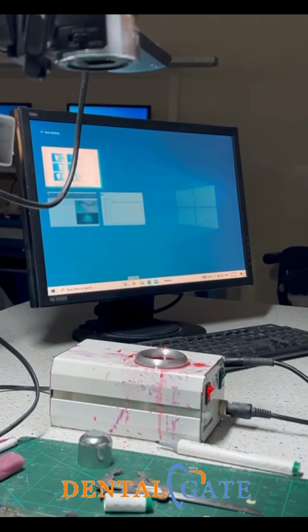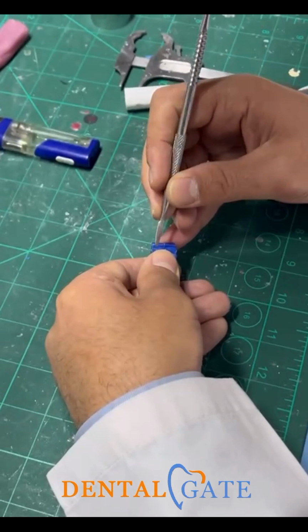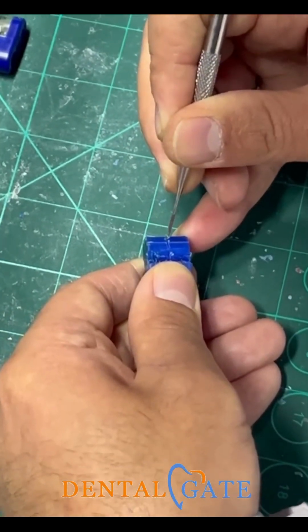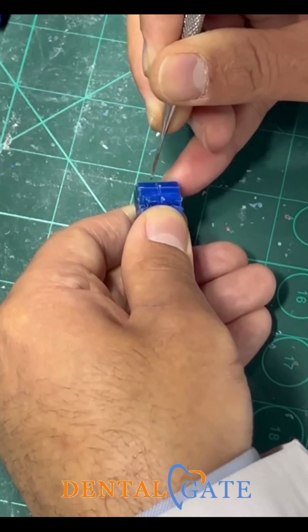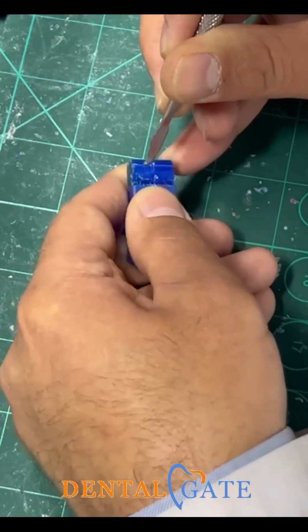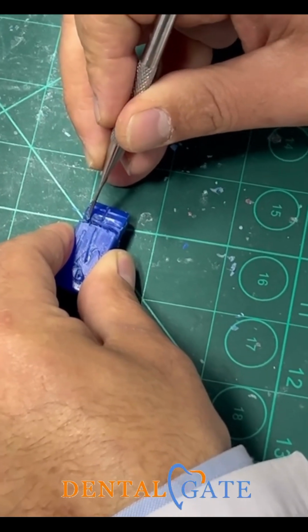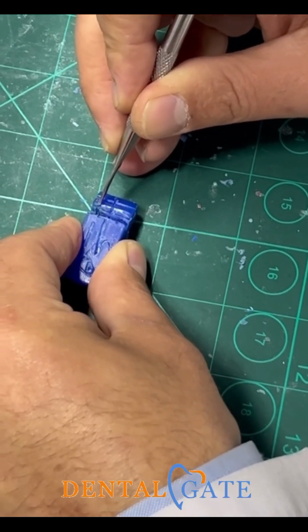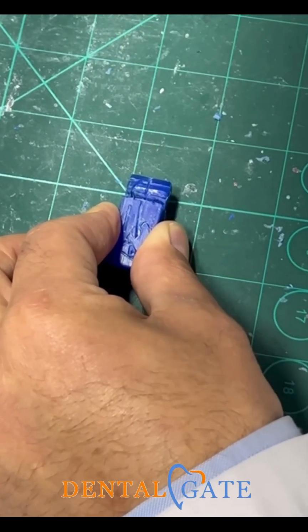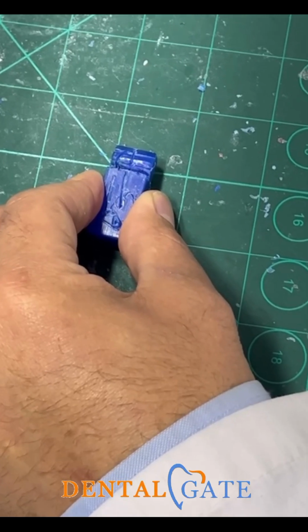It is very easy to apply it here. So this is the 5 millimeter. This is the 6 millimeter. So this is the tip of the lateral incisor, sorry. So you can now make a curve here until you reach the tip of the what? To the tip of the block. Okay?